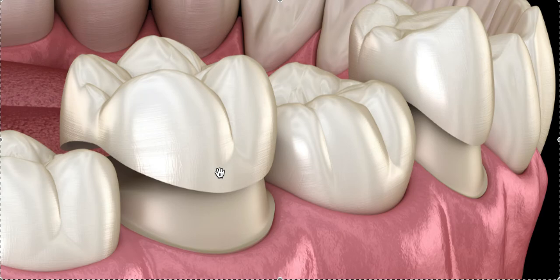Sometimes you have to drill a hole in it and break the glaze. They do make kits, and the best kit I've used is made by a company called Reliance — Reliance Orthodontics. They only do orthodontics and they have the best adhesive products. They have a really good kit — I have a separate video on it, or you can search my YouTube for 'porcelain bonding kit.' The kit is around $100–$200, but it lasts for many patients. If you can't get it to stick with that kit, you'll have to damage the crown — those are your two options, or change the treatment plan.